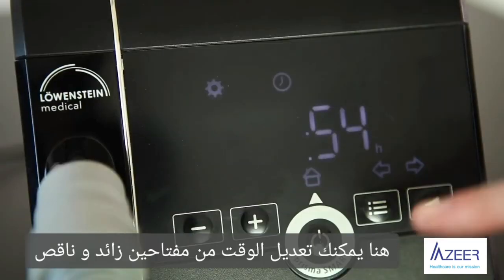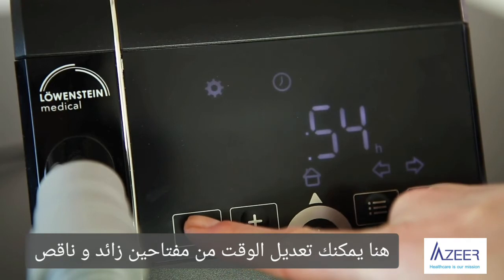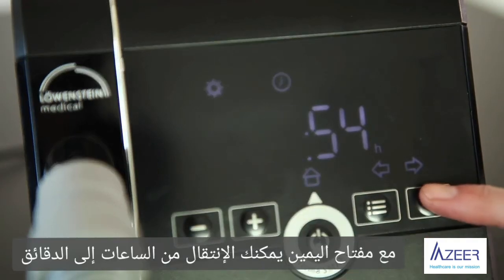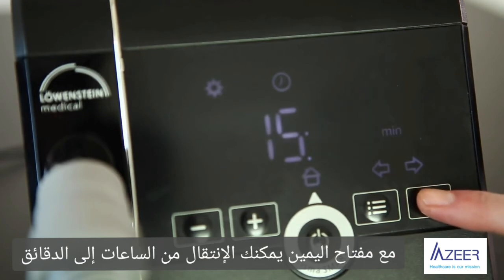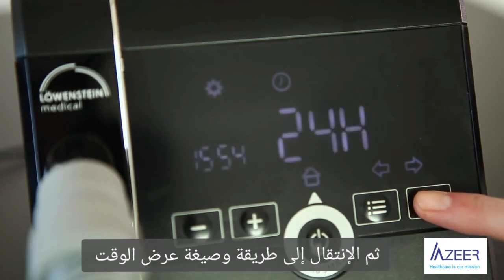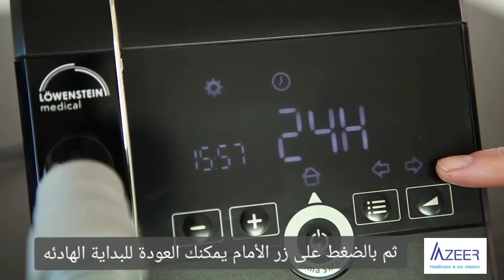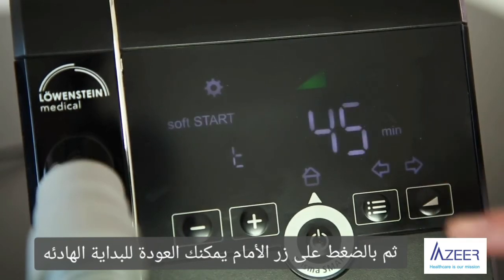Here you can set the time with the plus and the minus key. With the arrow to the right, you can switch from hours to minutes and to the format for the time display. By pressing the forward key, you get back to the soft start.